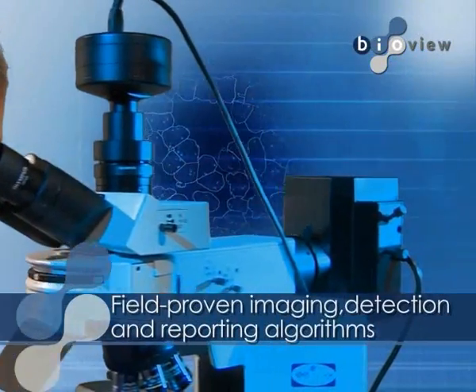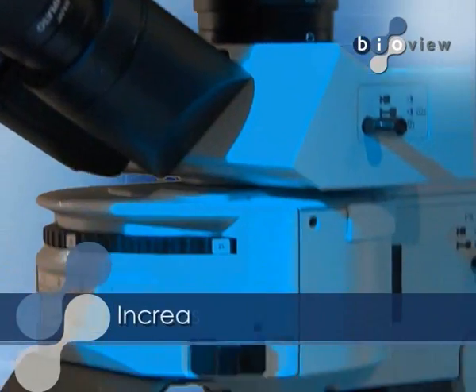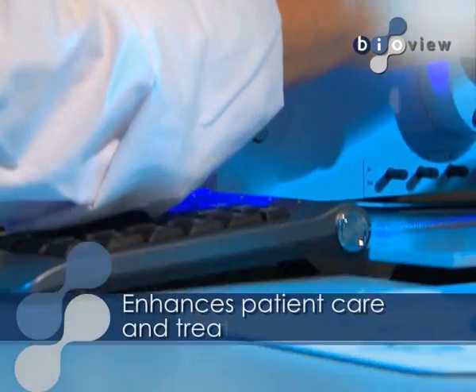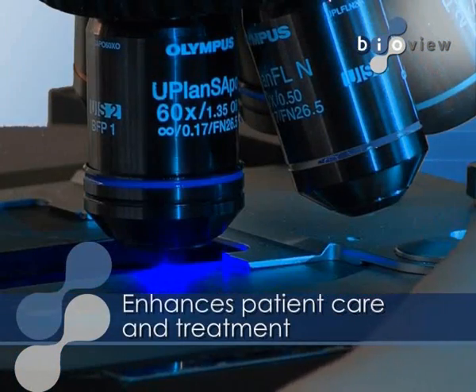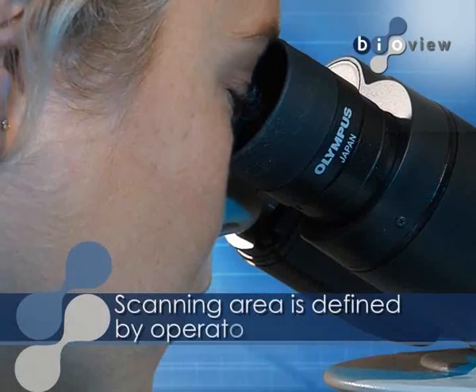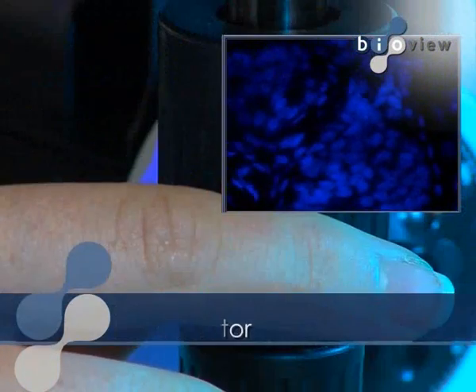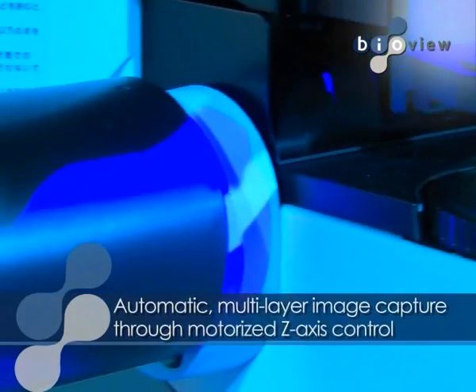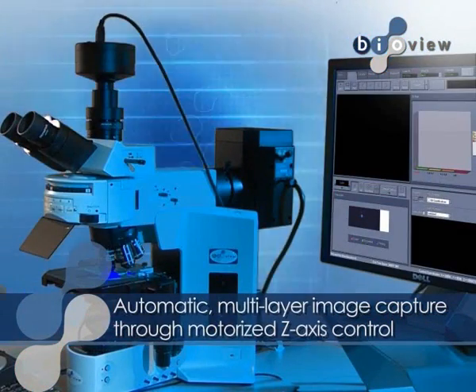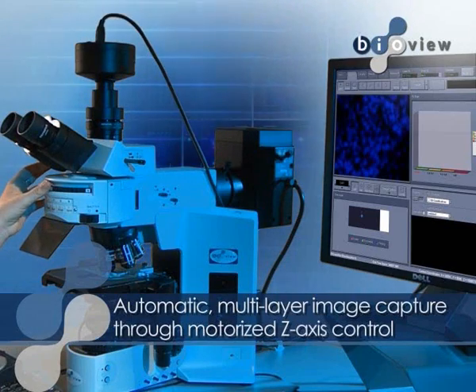The Legato utilizes BioView's field-proven imaging, detection, and reporting algorithms, increasing laboratory productivity and functionality for enhanced patient treatment and care. The operator defines the scanning area through the eyepiece and snaps the field of view. Using motorized Z-axis control, the system automatically captures multiple focal planes from each filter and combines them into a single layered informative image.